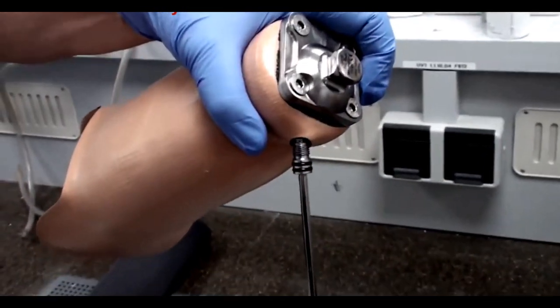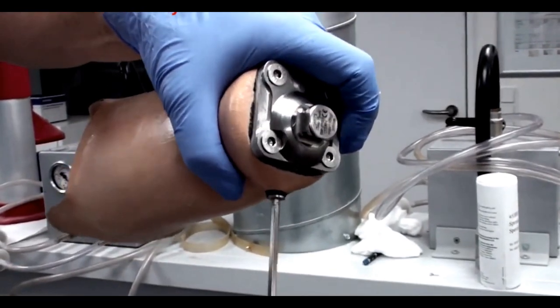Next, screw this in place in the DVS housing tight enough to make a seal.